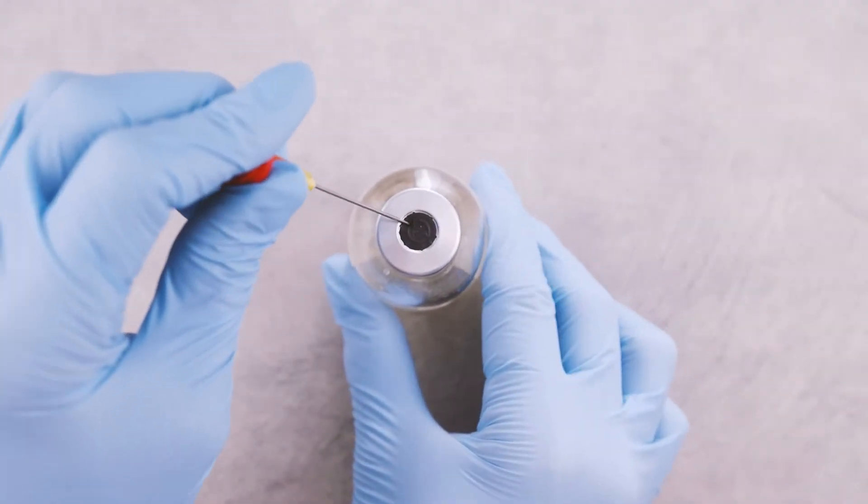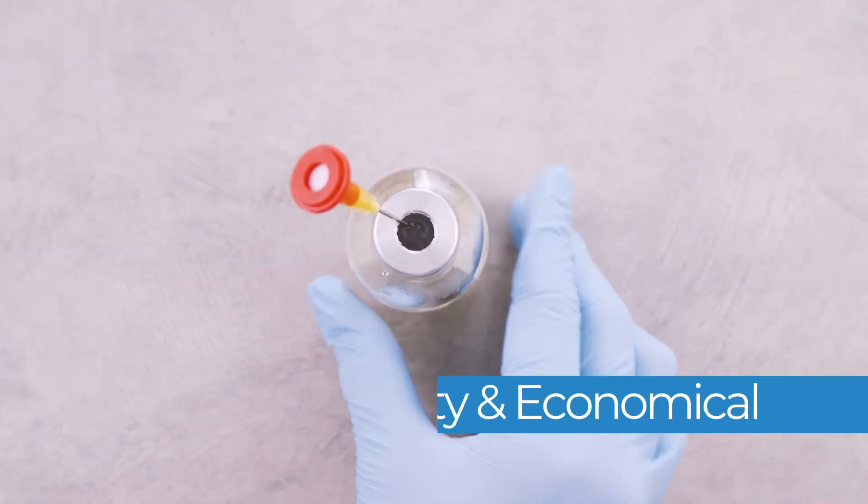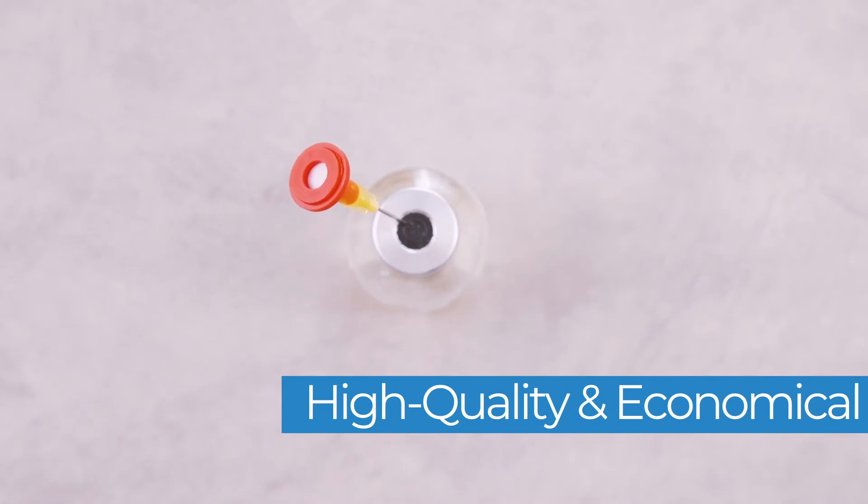IMI's RX Vent filtered venting needles are a simple, high-quality solution to maintaining sterility while venting evacuated containers.